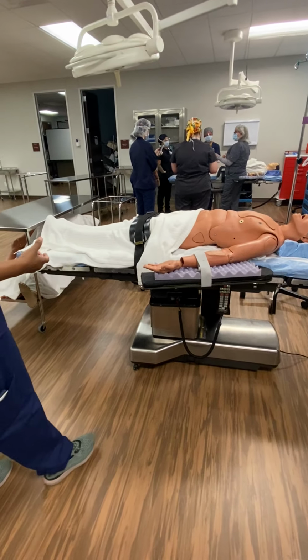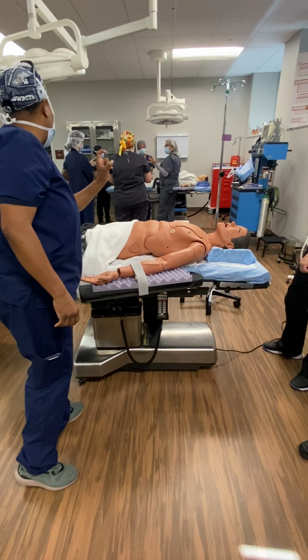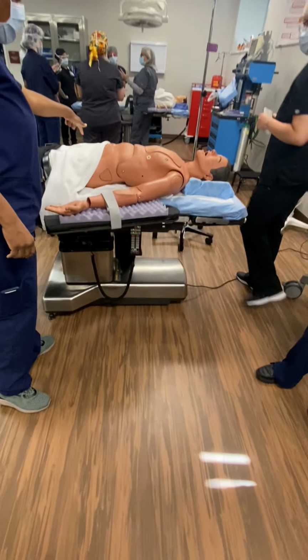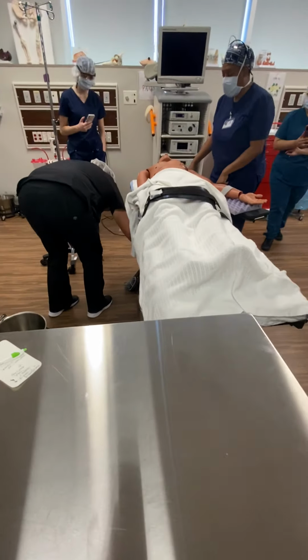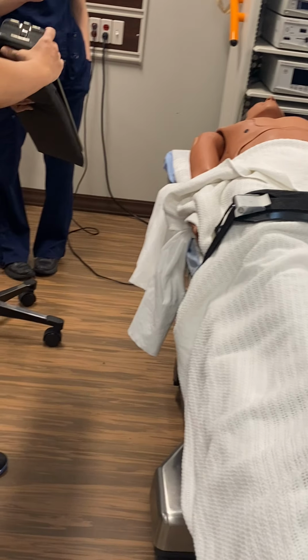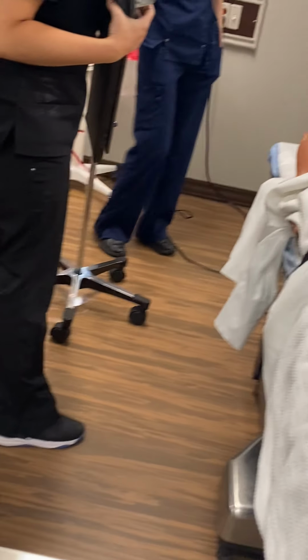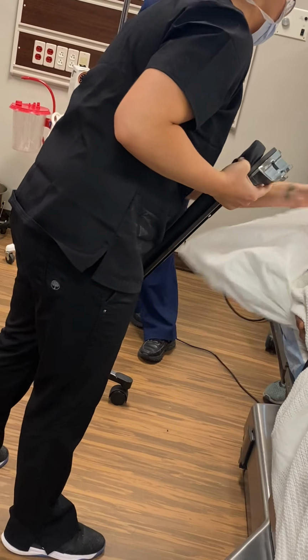So in the OR, I stay scrubbed on that one, but I break scrub. And then when they come in, I'm free. Marissa, okay? Get the other arm board and put it on for me. And so I stand on that side because the patient's wheeled in on this side. So when they are moving themselves over, I know they're not going to go too far. Very good.